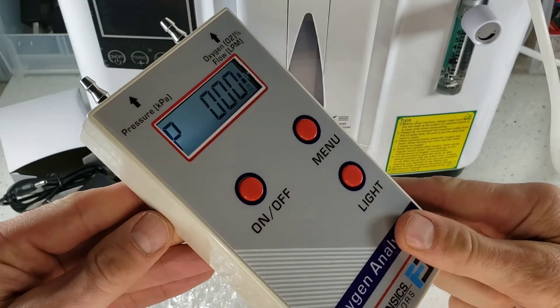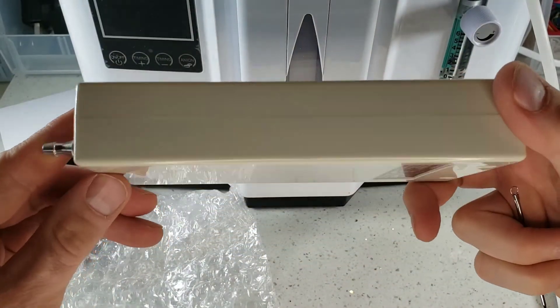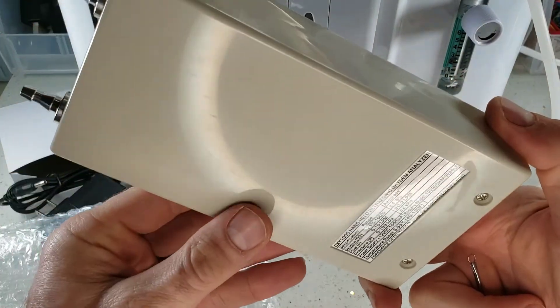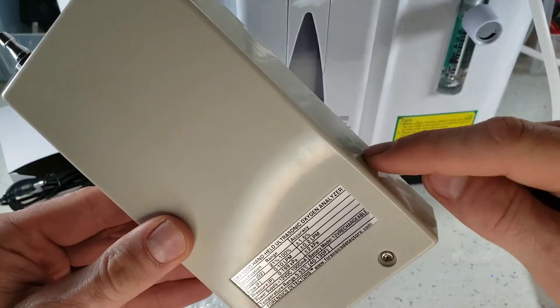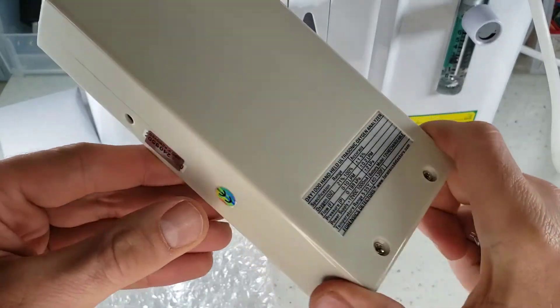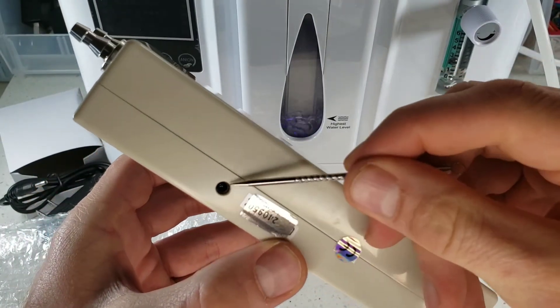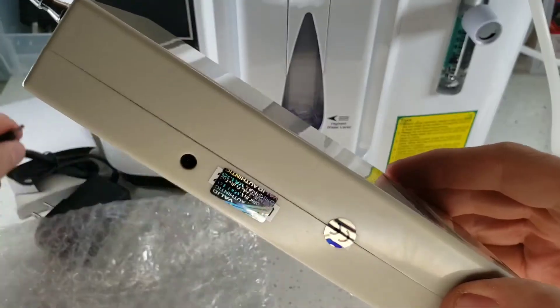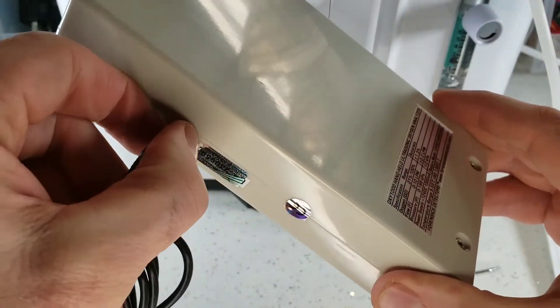Let's turn it over. The packaging is very simple. Inside we have a rechargeable lithium-ion battery — that's why we have the charger to plug it up. On the back we have our product specifications, and the serial number is on the side. Right here is our power port for the power adapter — you just plug that in and you're ready to go.